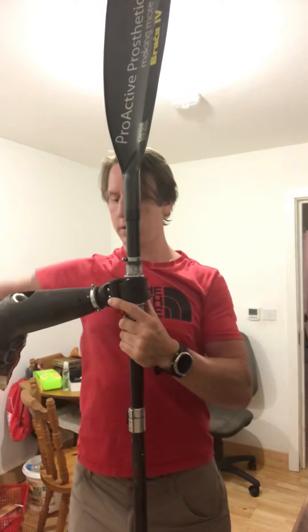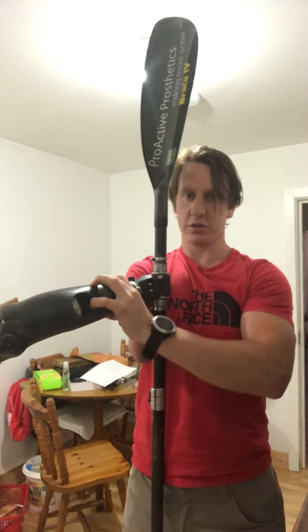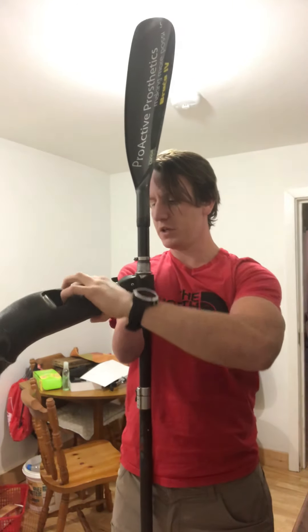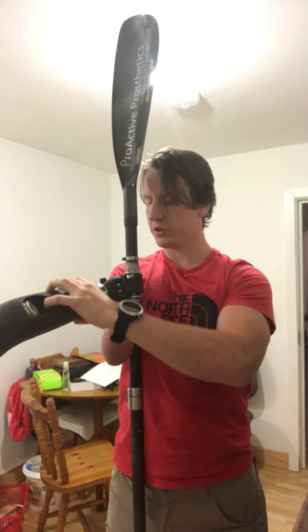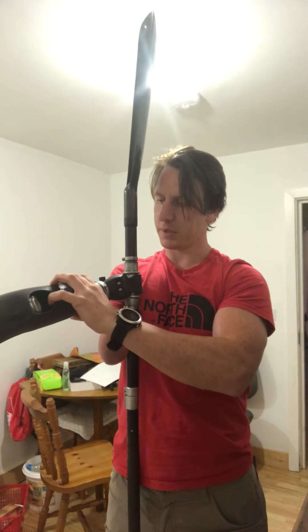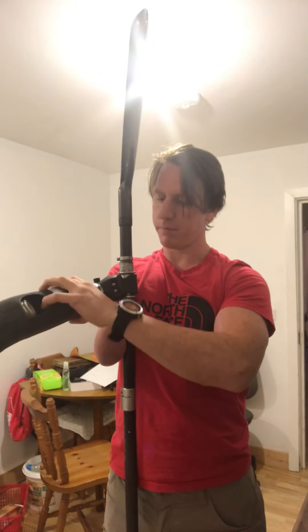That flexibility is really important when you're up in these positions. You're constantly adjusting throughout. The other thing I've created is wrist rotation — somewhere in the region of 75 degrees — which is something I've increased over time. I started off with none whatsoever and just depended on the flexibility of the rubber, but it was really limiting my stroke.